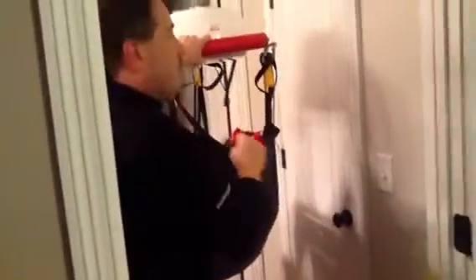Now if I have trouble reaching this strap here, I can bring Bree into the bathroom, grab onto the back bar, come through, take that loose, let it retract, follow it back into the lift, and then we can continue to the next room.